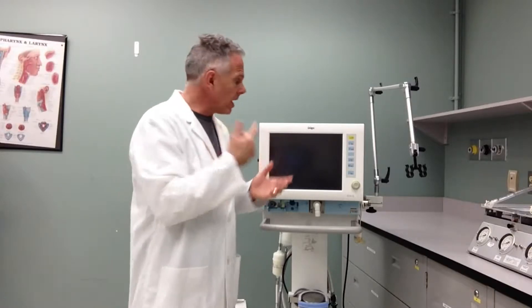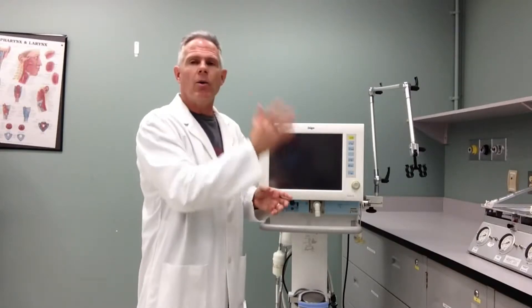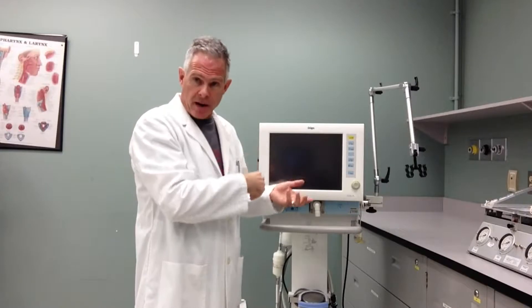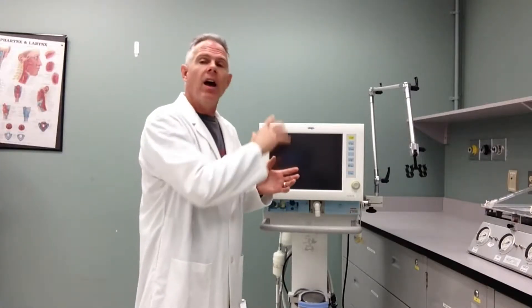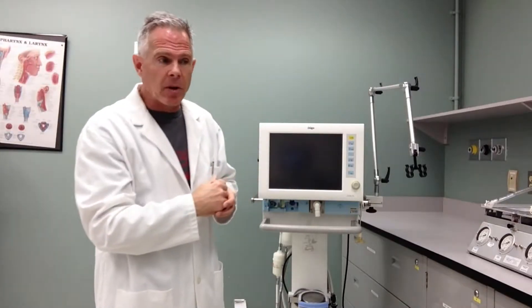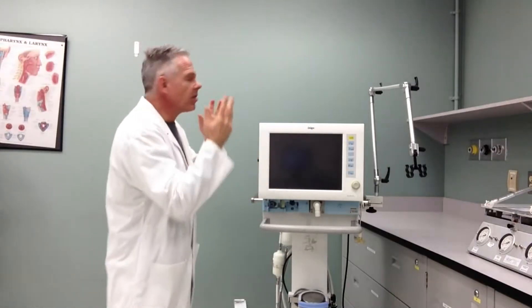The first thing you do is come up by the ventilator. It will be coming up prepared for patient use, so before it's even put in the patient's room it will be cleaned on the external — all components will be cleaned and prepared for a new patient. We come up from Biomed; the external components have been cleaned but they may have been touched by some other people. So I come into the room and I'm going to clean my hands with just a regular solution, and then I'm going to come around to the back of the ventilator.